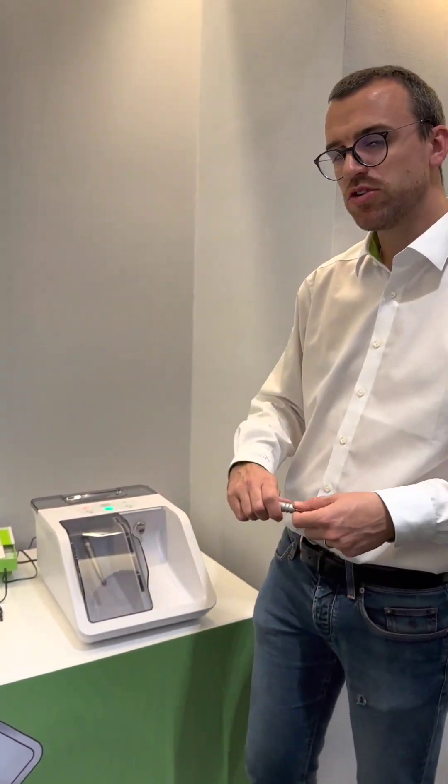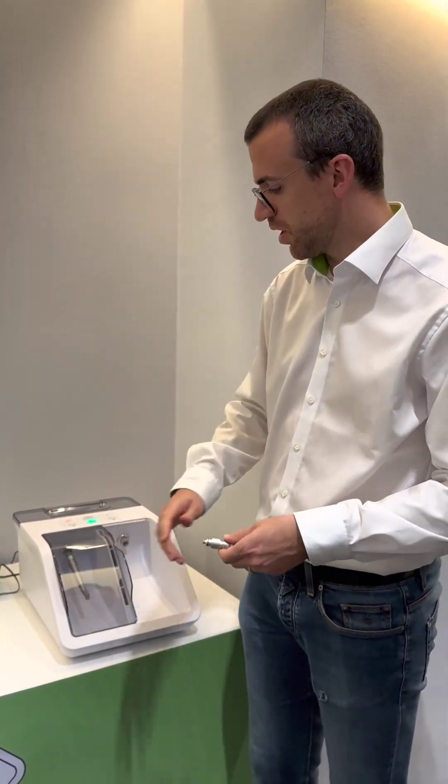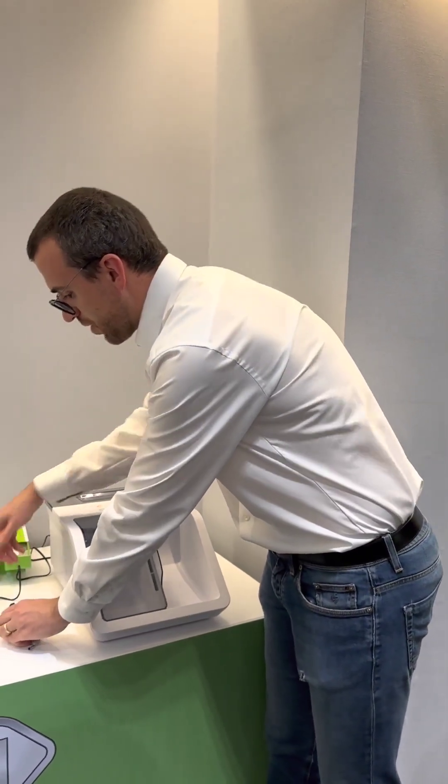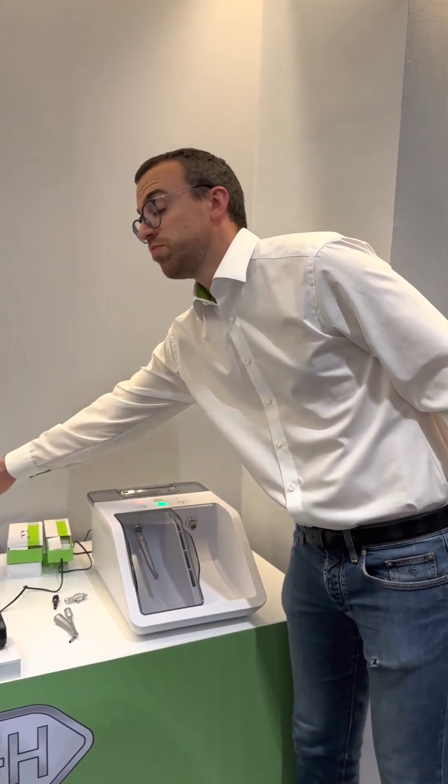You already have additional information. It's a quite simple device but it works really properly in a fast way — super simple to use.